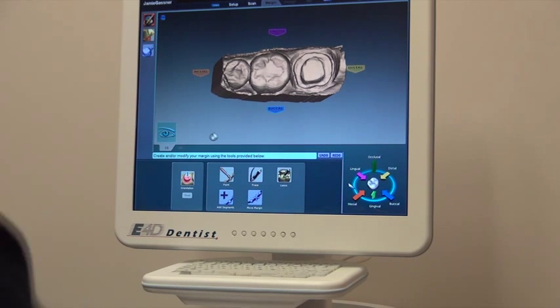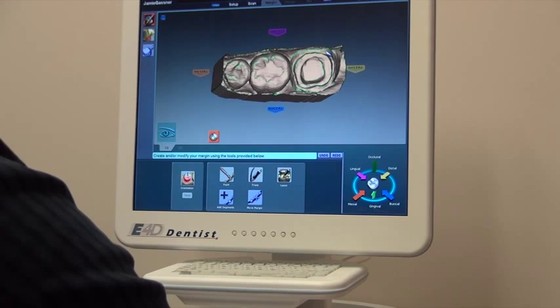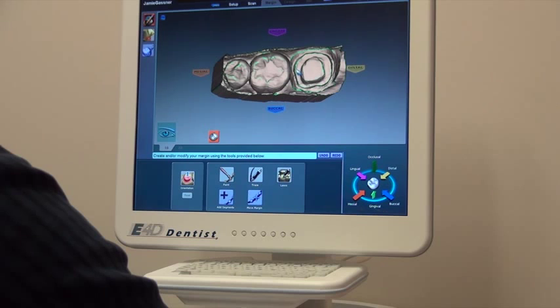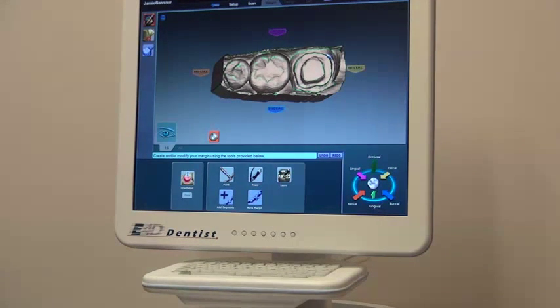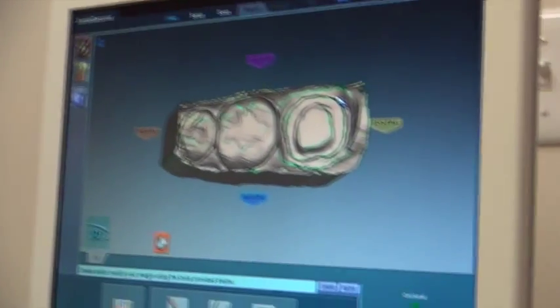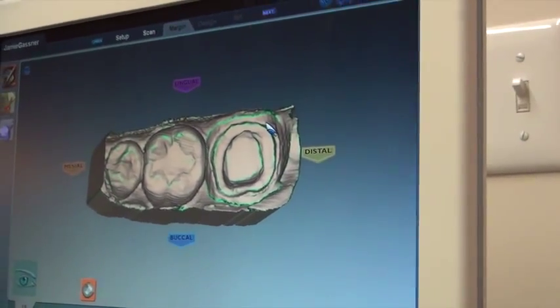Now we have to create the margins on the model. We'll highlight the areas which have more of a margin — it'll paint everything that's more of a sharper edge in green. That's where our margins are. You can see a nice green line all the way around the circular circumference of the tooth. Let me zoom in so you can see the green around the margin area of the tooth.